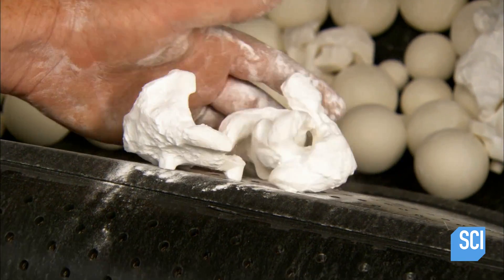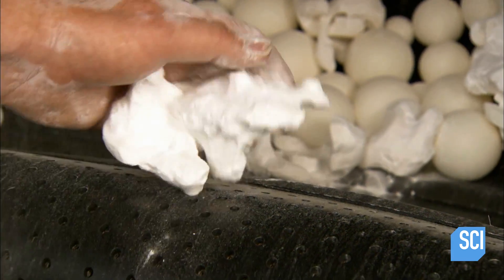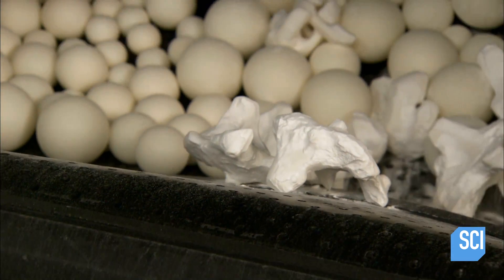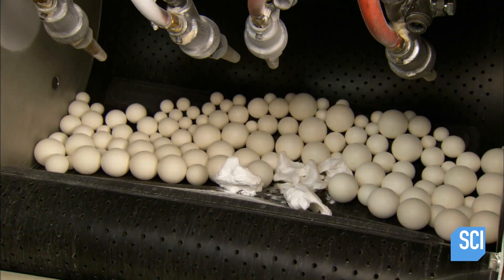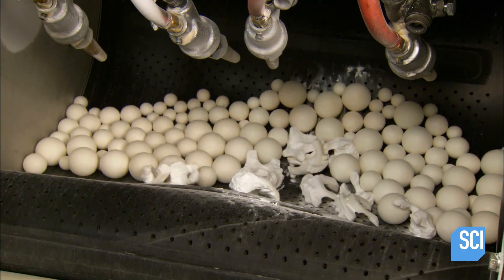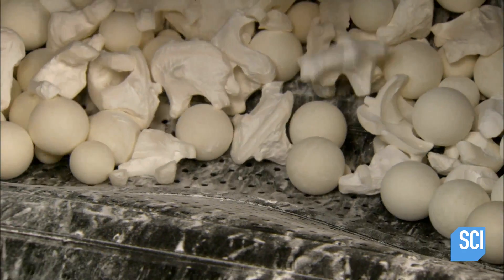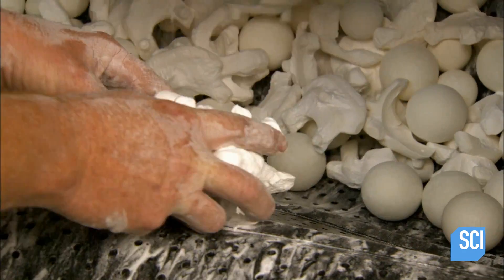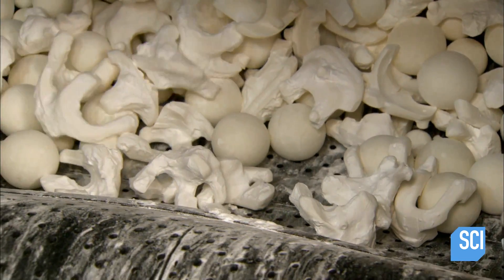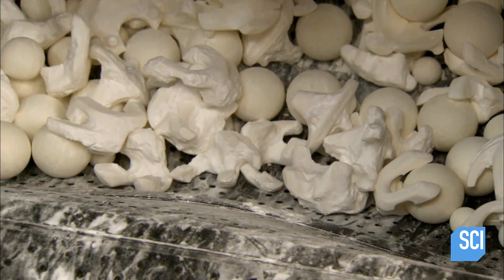Next, the templates go into a tumbler containing plastic balls and air jets. As the drum rotates for 20 minutes, the balls knock off and the air jets blow off most of the remaining powder.